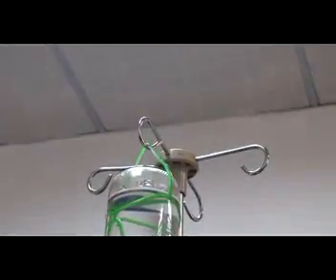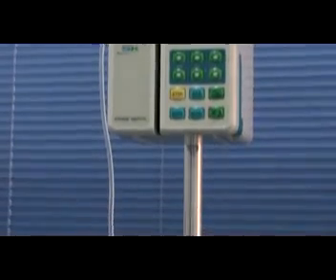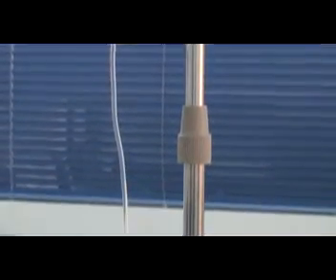Thank you for choosing SK600i infusion pump. We test our infusion pump with Dragonheart IV set for accuracy, but all standard IV sets are acceptable for it.